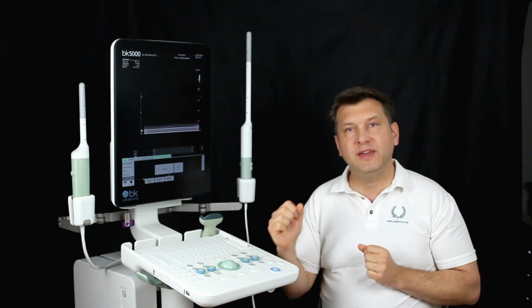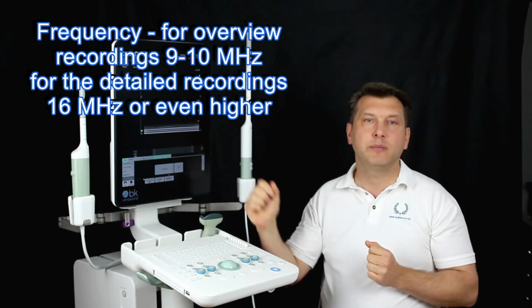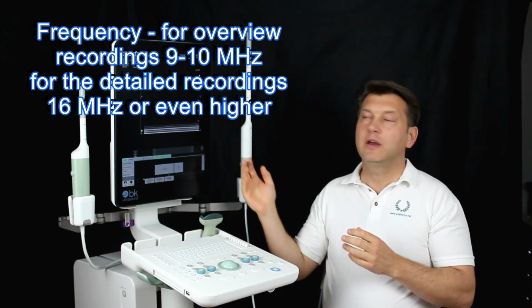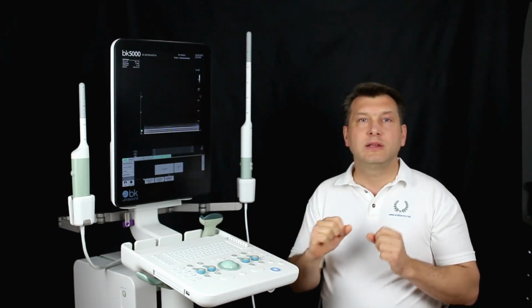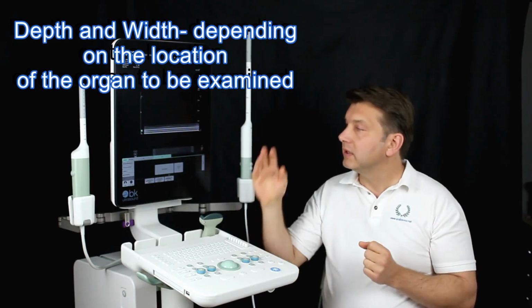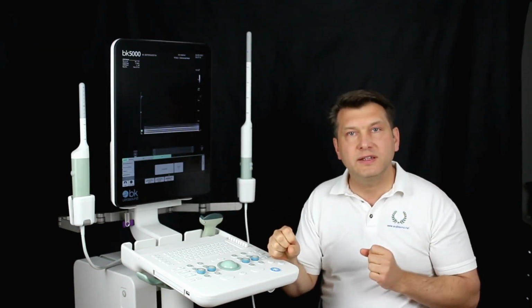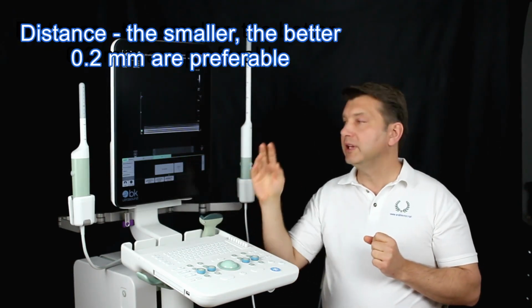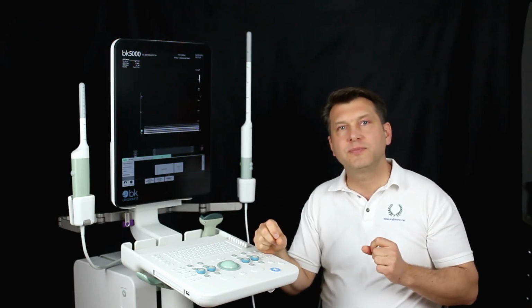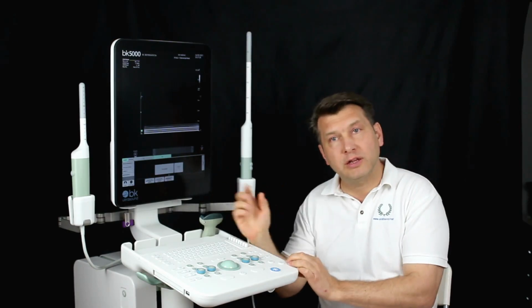In summary, we can say for our 3D sonography assessment, frequency for overview recordings 9 until 10 MHz, for the detailed recording as high as possible, so we choose 16 or in this probe 14. Depth, depending on the location of the organ to be examined, and width as well. Resolution, normally the slower the better. In this scanner we can leave it in the standard position. Distance, the smaller the better. 0.2 millimeters are preferable. Acquisition time, inversely proportional to the distance. The higher the distance, the lower the recording time, but the worse the recording results.